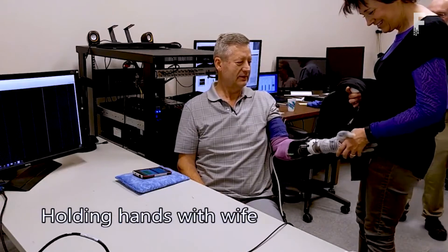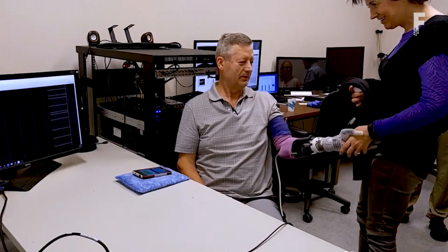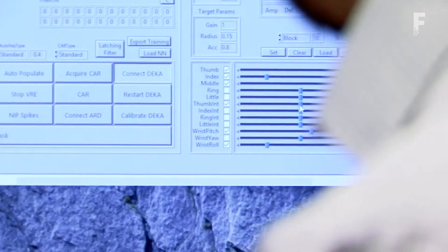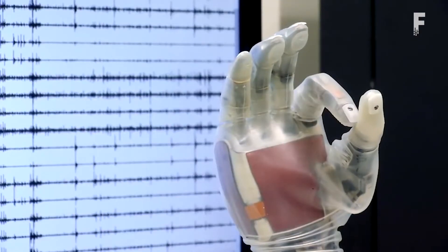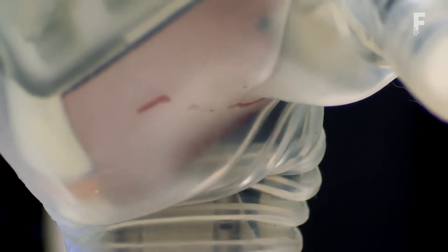The sense of touch means users can distinguish between different surfaces, because they feel objects via sensors in the hand that feed impulses to the nerves in the arms. This means an amputee wearing the prosthetic arm can sense the touch of something soft or hard, understand better how to pick it up, and perform delicate tasks otherwise impossible with standard prosthetics.